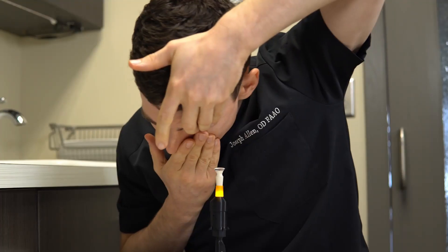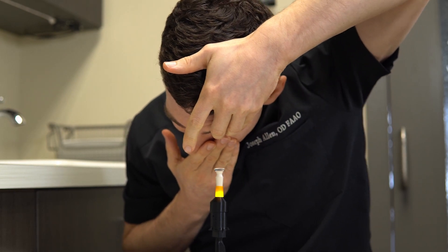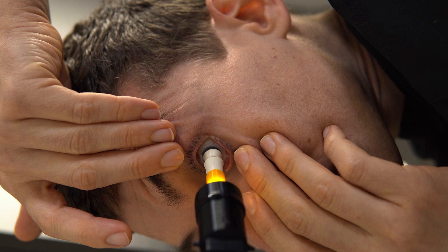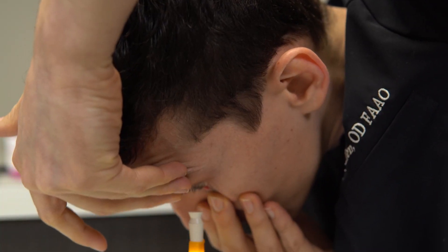Step four: once the lens makes contact with your eye, move your head back up and away from the device and slowly release your eyelids.